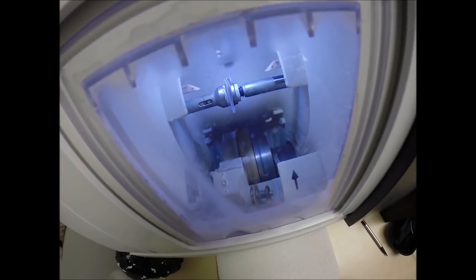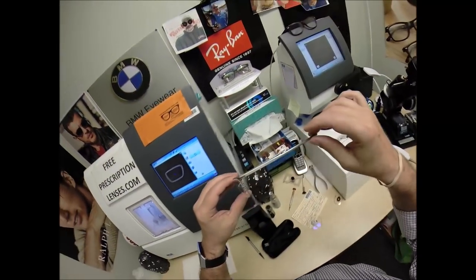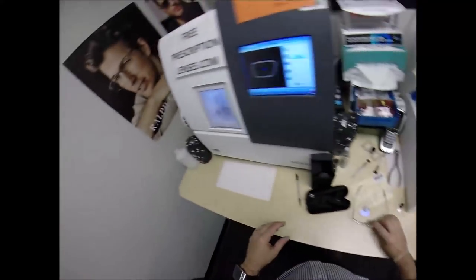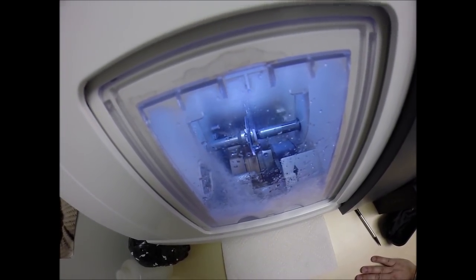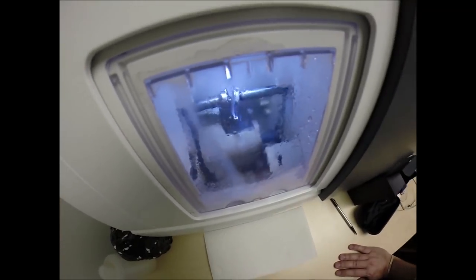On the same spinning lever, the lens is going back down onto the bevel wheel — not to get a bevel, but to smooth out any rough edges and make the edge exactly flat again, like a nickel. If I took it out now it would stand up on the counter on its own. Water has begun spraying on the lens, which tells me it's in the last 20 seconds. A little lever will come back out with a spinning disc that acts like very fine grit sandpaper to grind away any rough edges on the front and rear surfaces of the lens — that's known as a safety bevel. Vocabulary lesson of the day — ding, you may turn the page.